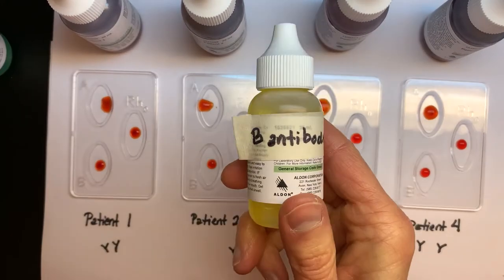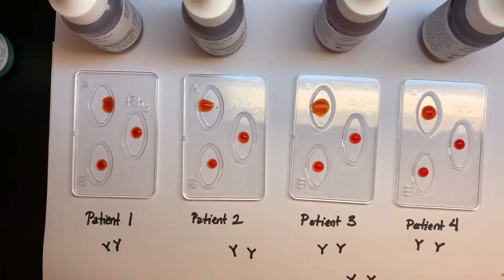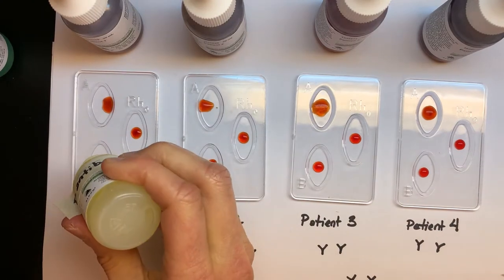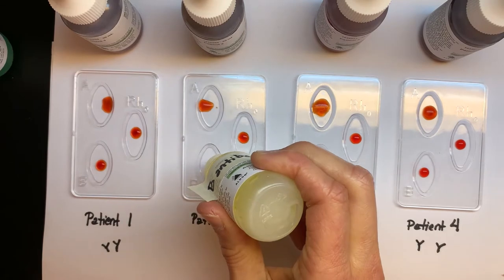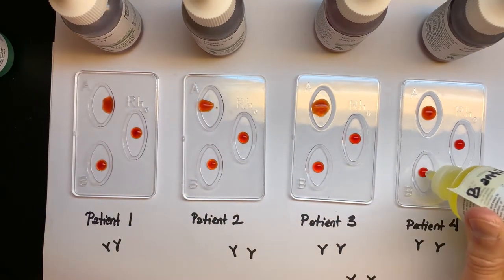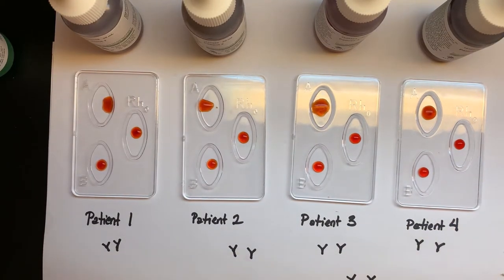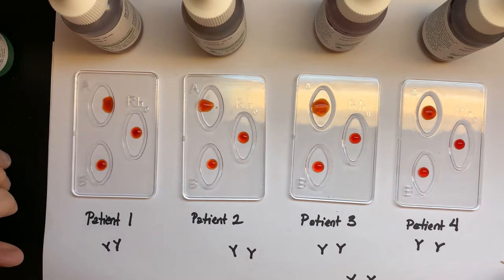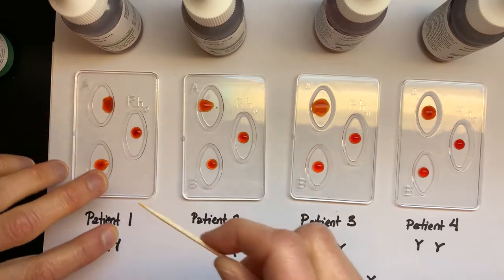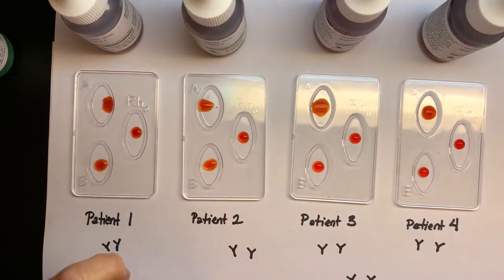Now I'm going to use B. Here's the B antibody. Let's put one drop of B into all of the B wells for each of our patients, and see if those B antibodies find any red blood cells that have a B antigen on them. If they do, they're going to bind to them and put them in a big pile in the center — which is called a clump, or an agglutination.